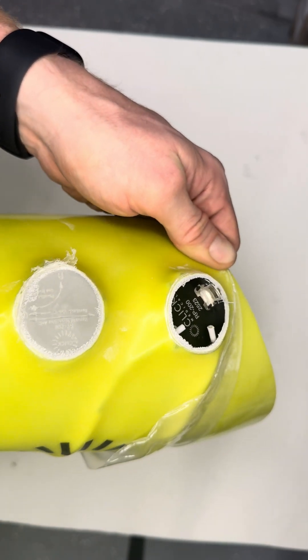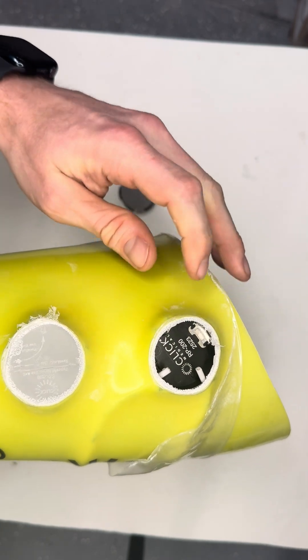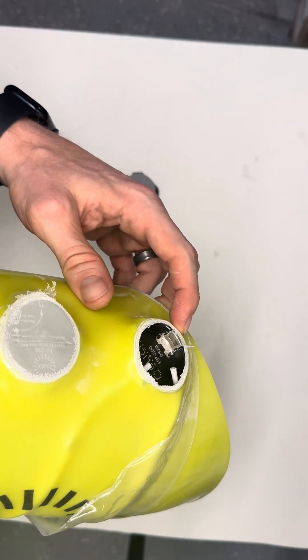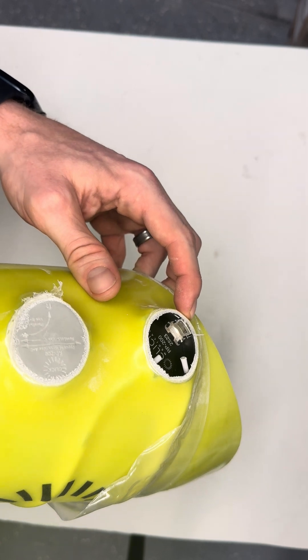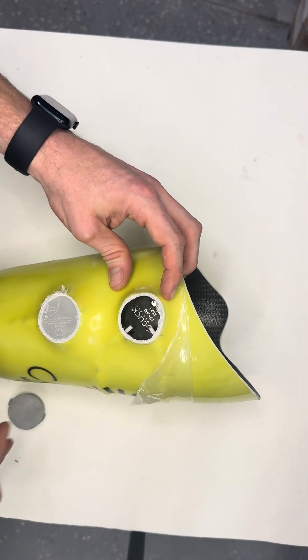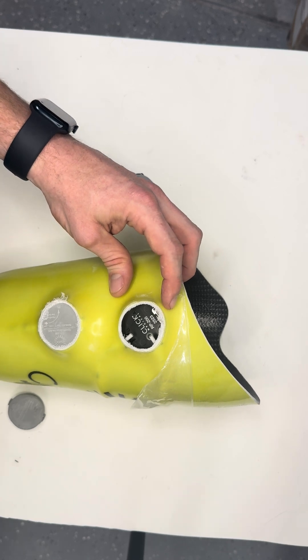This is where your Click Reel is going to be snapping into that lamination collar. We want to make sure that we expose that metal bridge — that's your visual indicator where the retention tab is going to be snapping into place on that Click Reel.